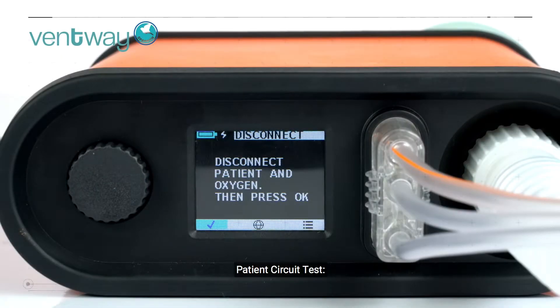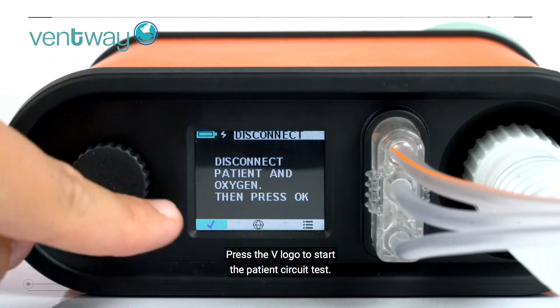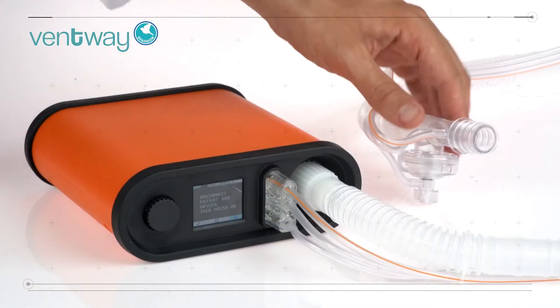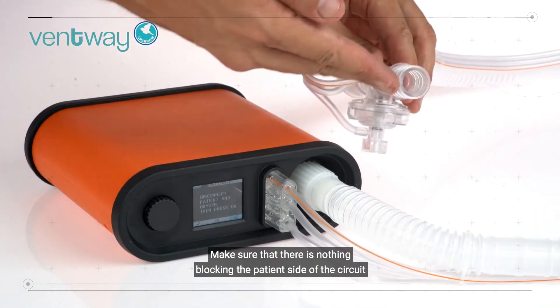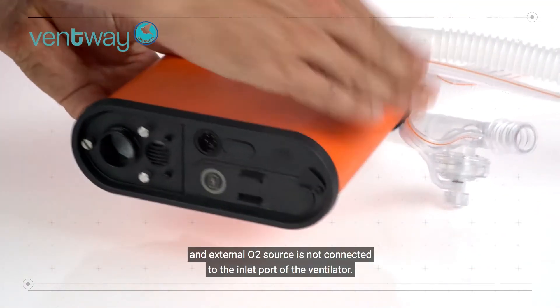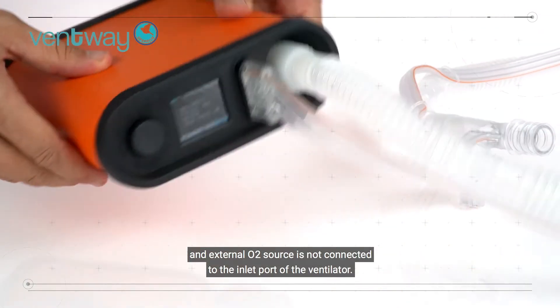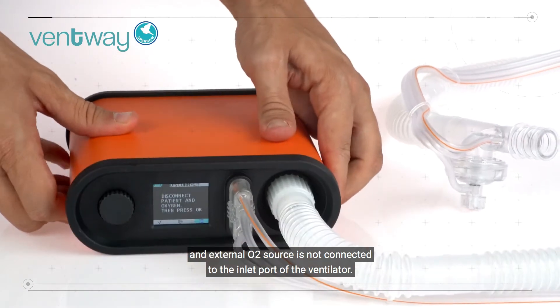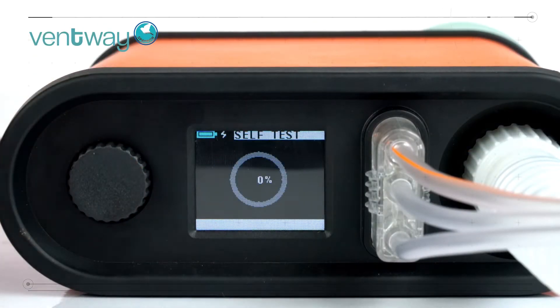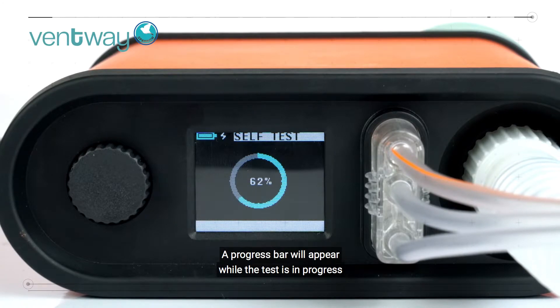To start the patient circuit test, press the V logo. Make sure that there is nothing blocking the patient side of the circuit, and the external O2 source is not connected to the inlet port of the ventilator. A progress bar will appear while the test is in progress.